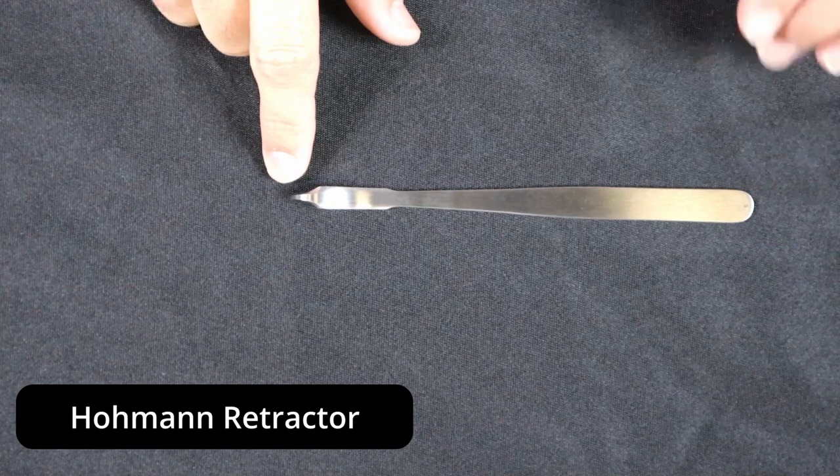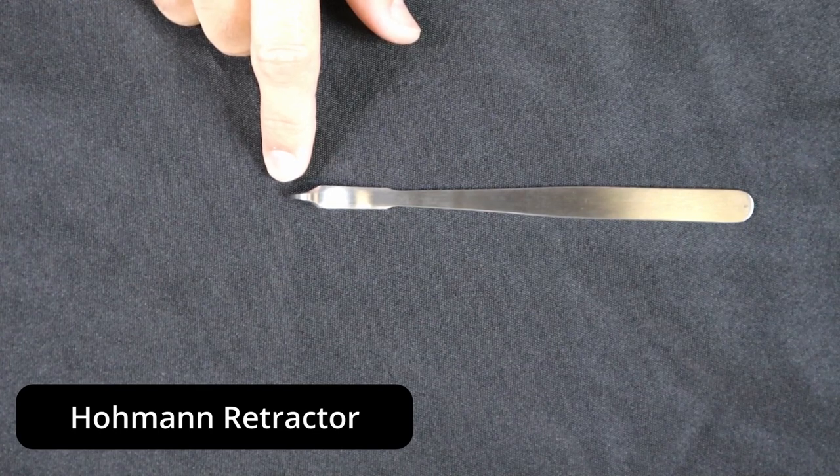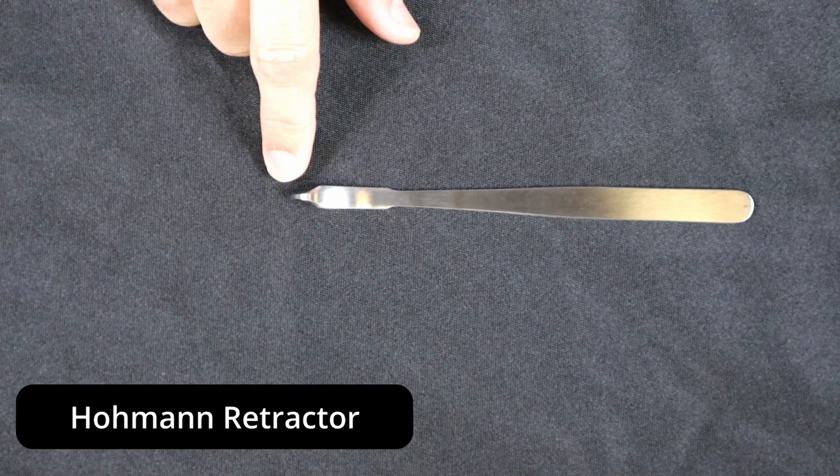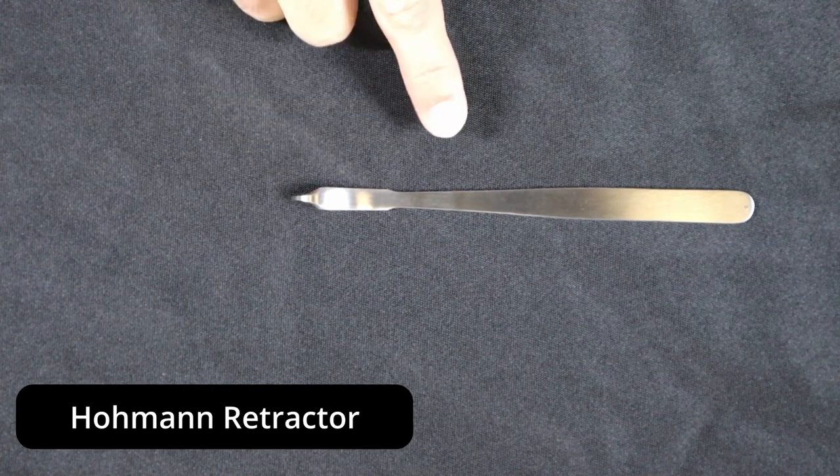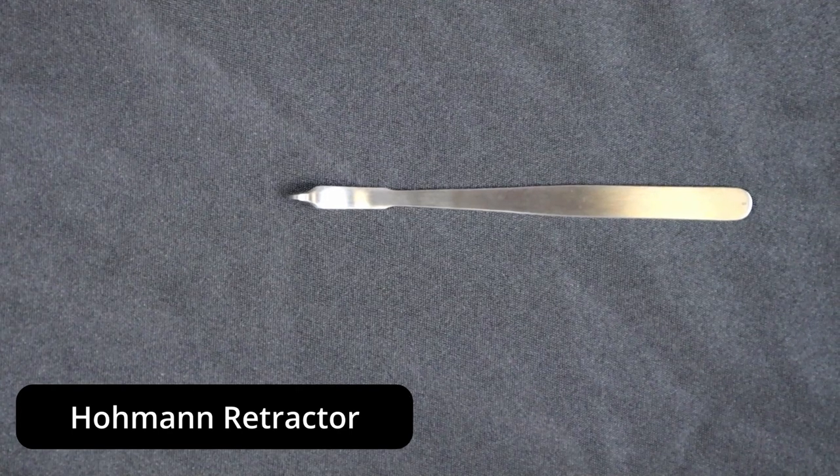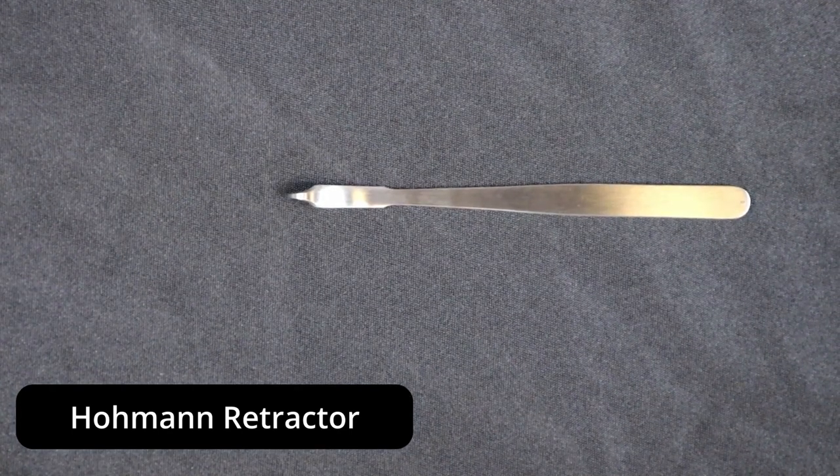As you're looking at the type of Hohmann Retractor in front of you, it's important to keep in mind that there are tons of variations of Hohmann Retractors. You've got long blades, you've got short blades.